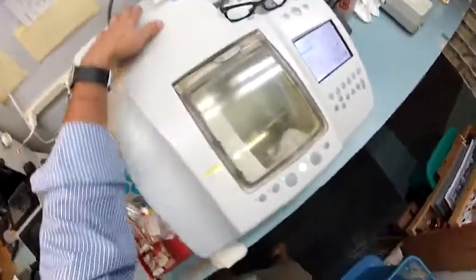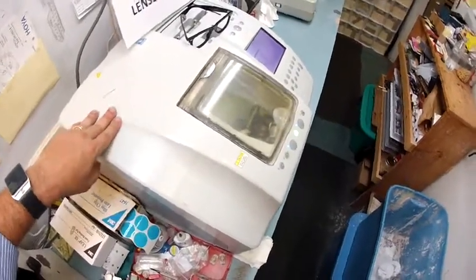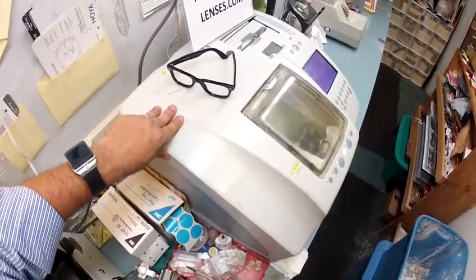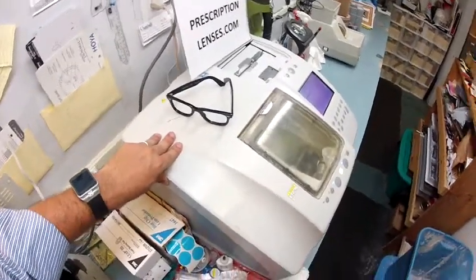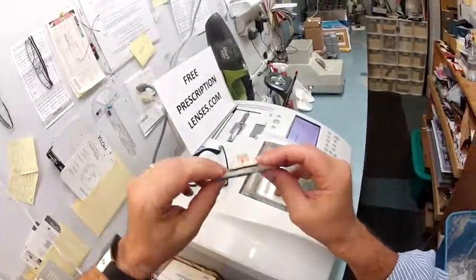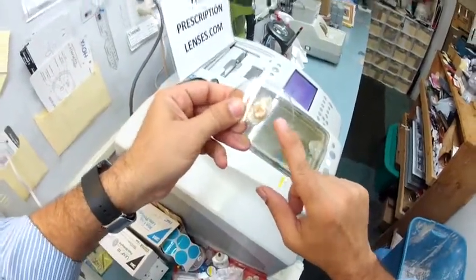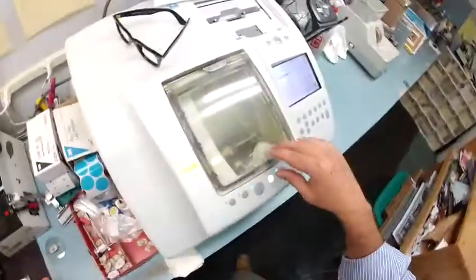Take your frame out and get that ready. Your lenses are polycarbonate. Let me back up — there are three main lens materials: glass, plastic, and polycarbonate. Glass has gone the way of the dinosaur; you occasionally see it in a few sunglasses, but for the most part no one wears it for clear lenses due to the chance of it breaking if hit by a rock. Plastic is very common. The polycarbonate lenses you are receiving are 40% thinner and lighter than regular plastic. They are virtually unbreakable. Sergio, your lenses are bulletproof up to 22 caliber and have both UVA and UVB protection. We know what the sun's harmful ultraviolet rays can do to your skin from overexposure, and your eyes are eight times more sensitive than your skin. So you have permanent sunscreen for your eyes.